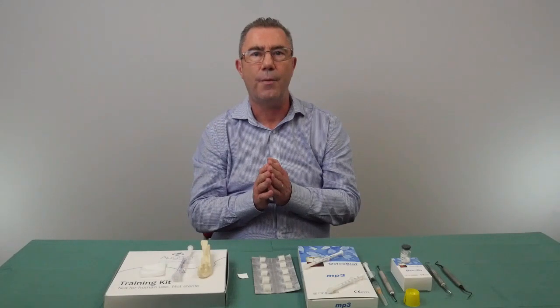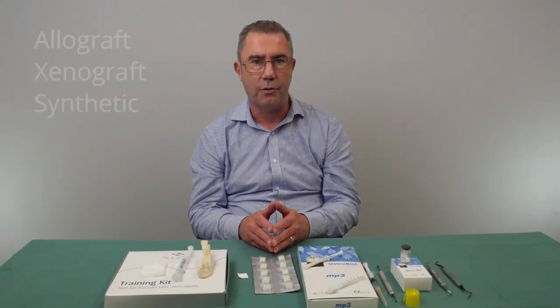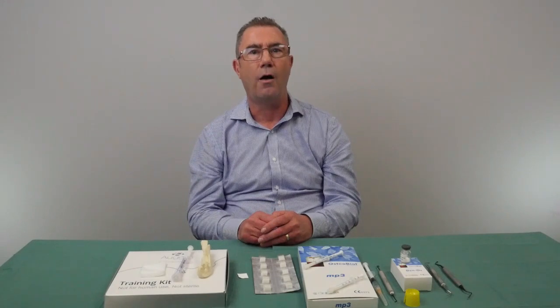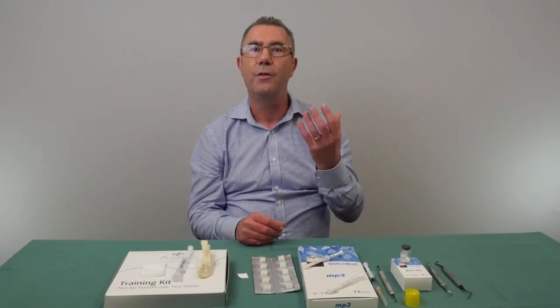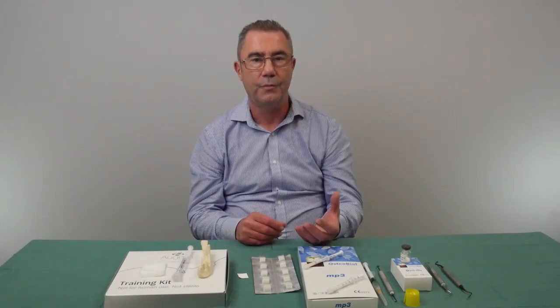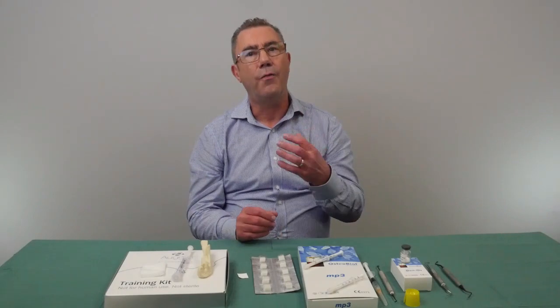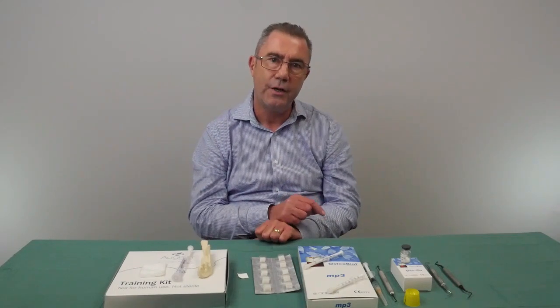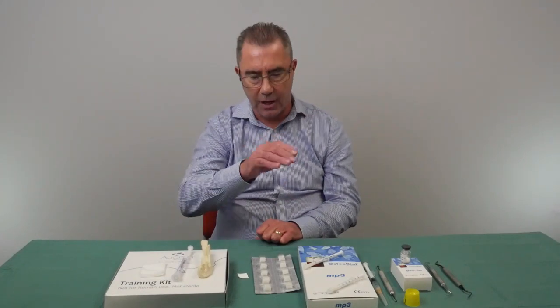There are three basic types of bone regeneration material available: allograft materials, xenograft materials, and synthetic materials. Allograft materials are made from the same species as the recipient — in this case, human bone. They are treated to remove all proteins to ensure safety, then irradiated and supplied either in granules or lumps. For socket preservation, granules are used — they are placed into the socket and then covered with a membrane.